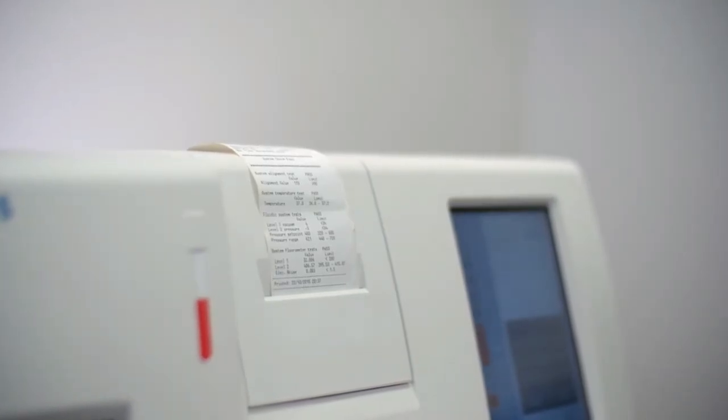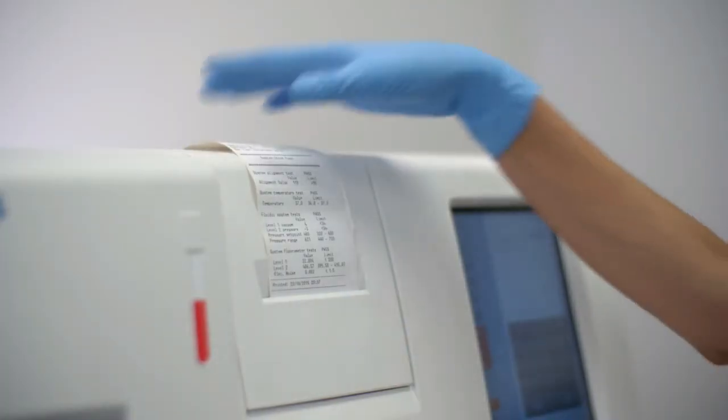Once testing is completed, results are printed. Results can also be sent automatically to the laboratory information system if connected.